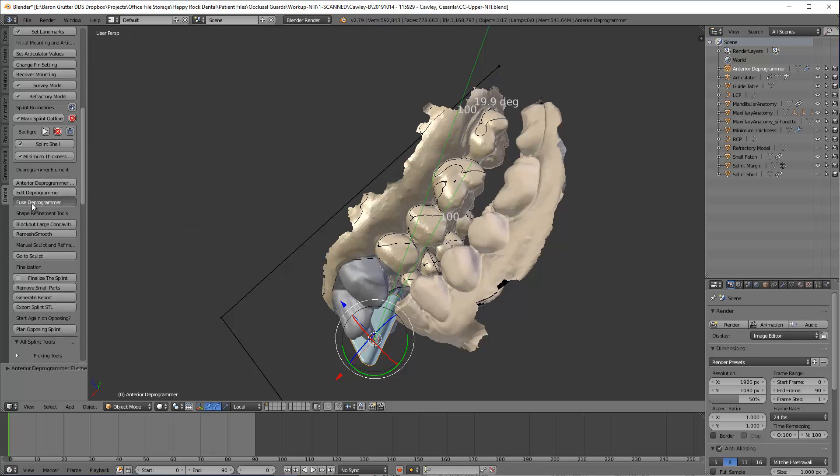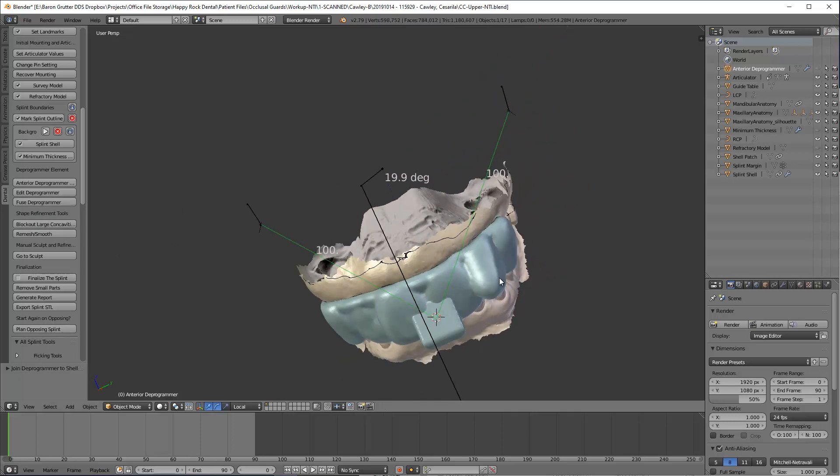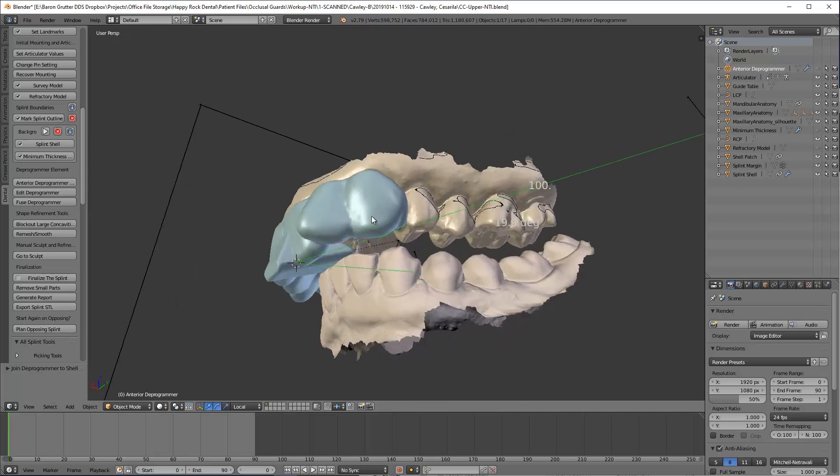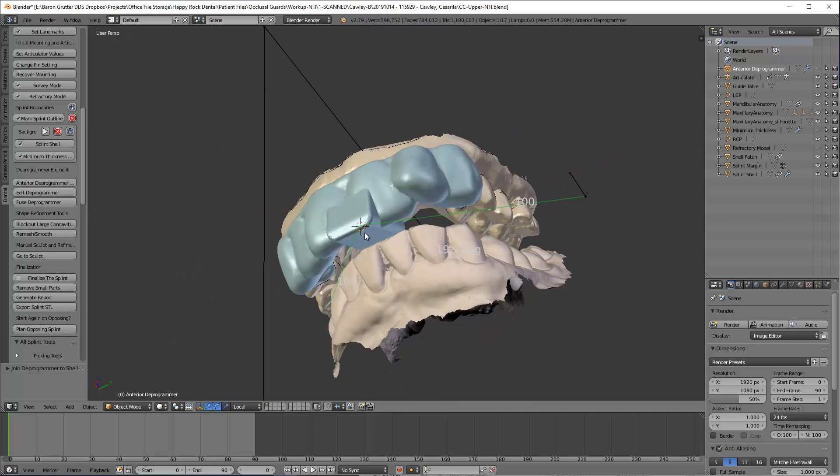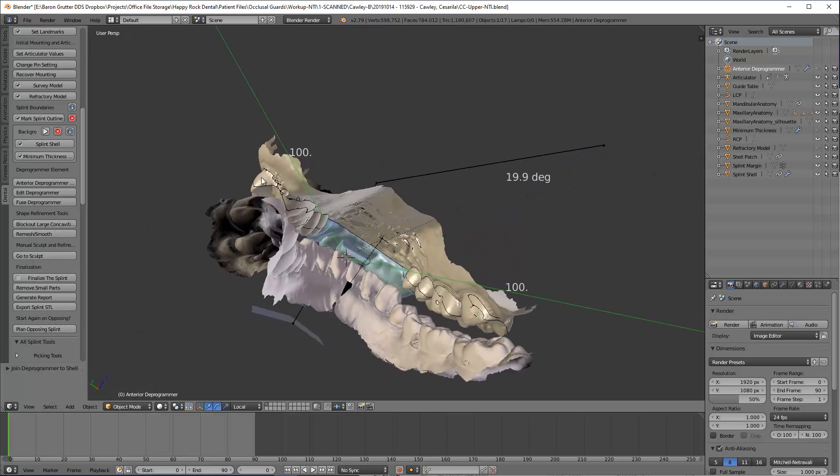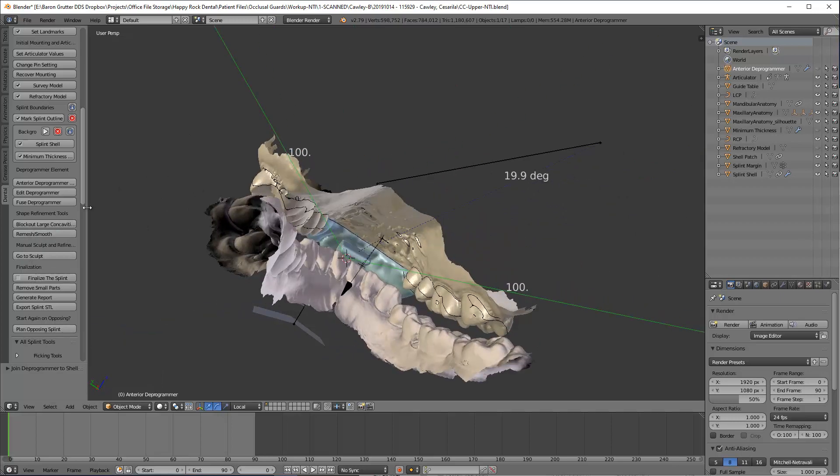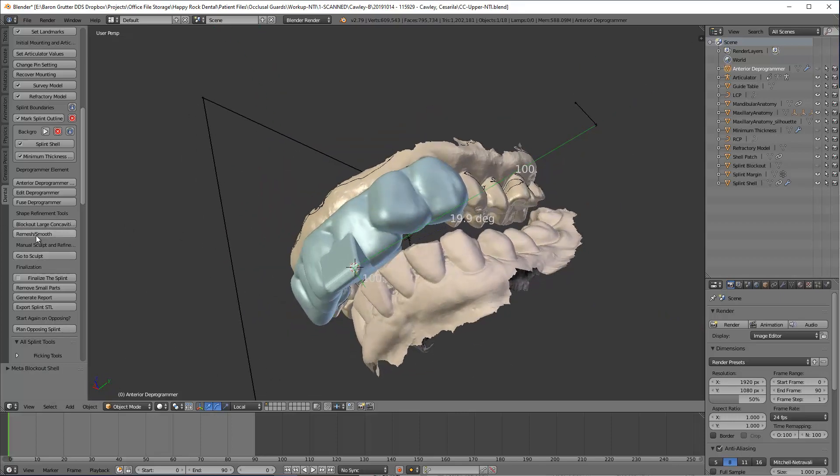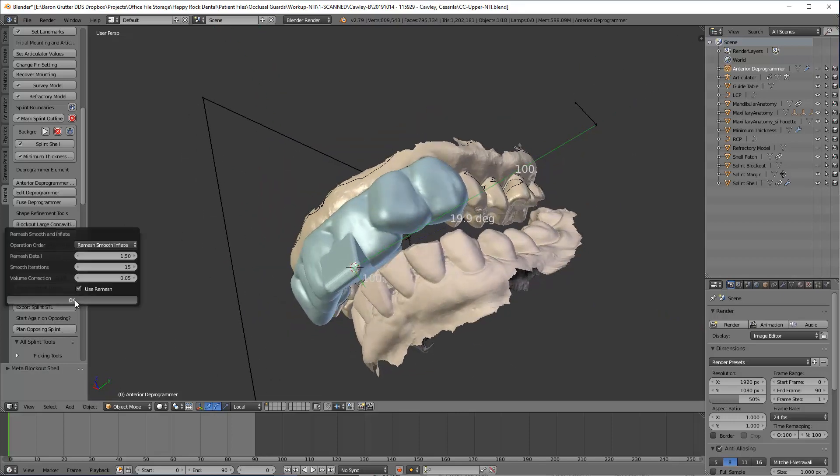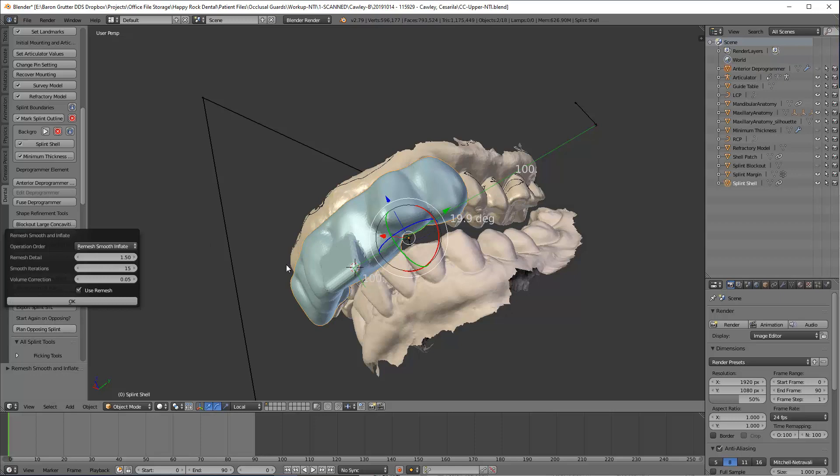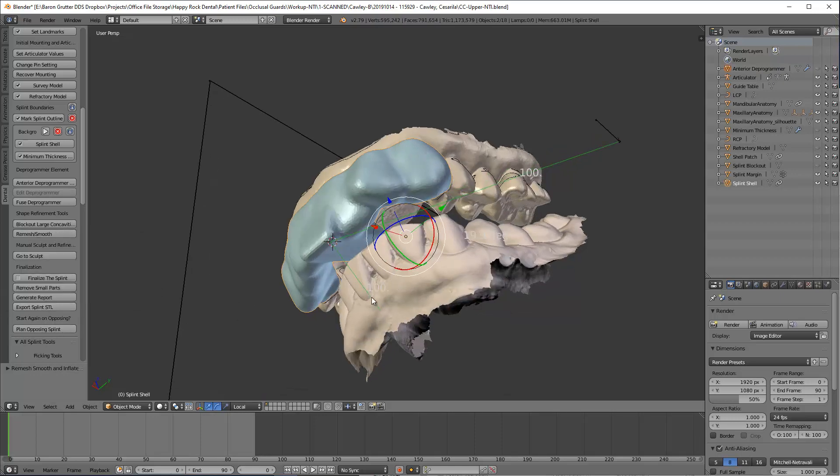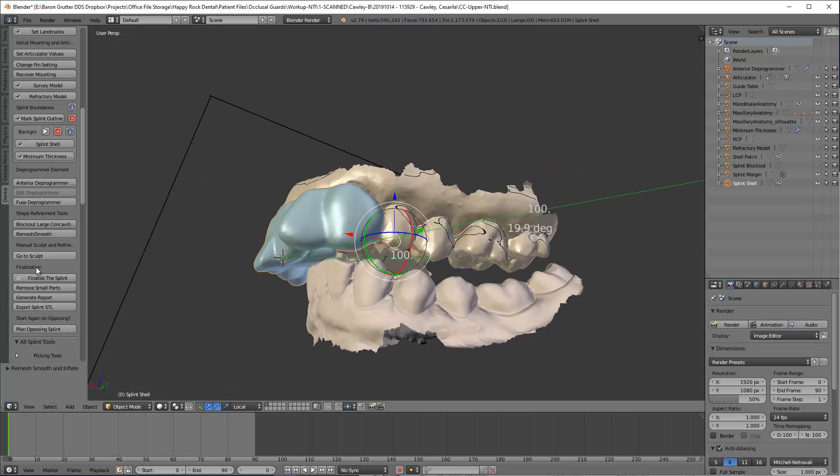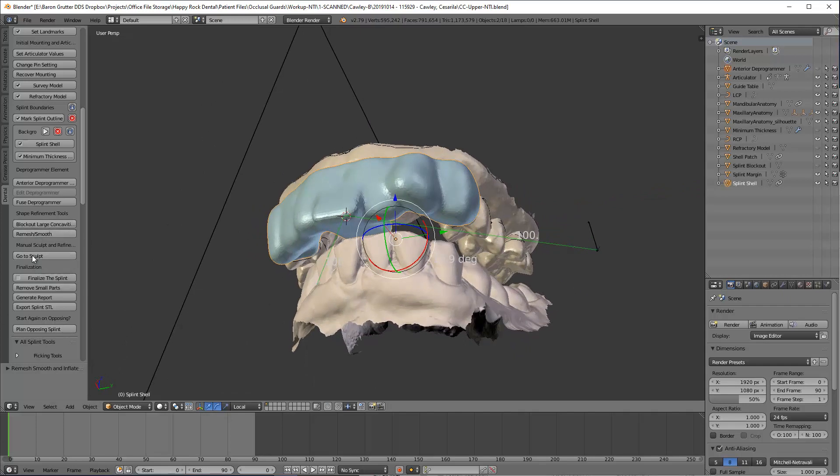And so now what you didn't see was this was designed already, and now here's the deprogrammer all fused together. Now we want to smooth things out, make sure the transitions aren't so sharp. So we come down here and we go to block out concavities, which will help to sometimes fill in this area. Sometimes it does, sometimes it doesn't. I'm not too worried about it either way. But I always click that to let it try to. And then I go ahead and hit remesh smooth. And now personally, I do this remesh smooth twice. You'll see what happens in a second. Looks kind of grainy, almost like Minecraft, if any of you have kids. A little bit smoother here, and that's what I'm good with. Now I skipped sculpt. Sculpt is your ability to manipulate areas and stuff. I just don't do that, so skip that.